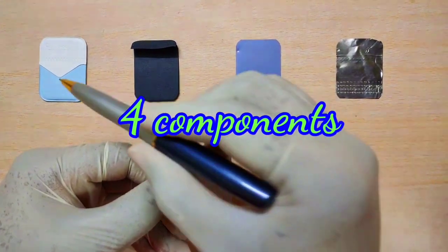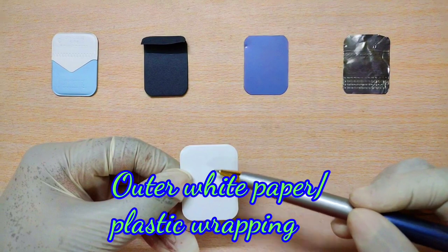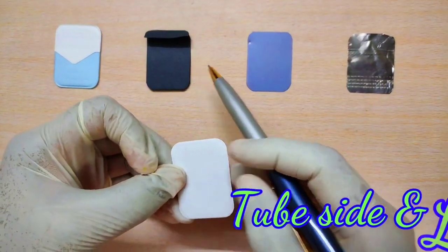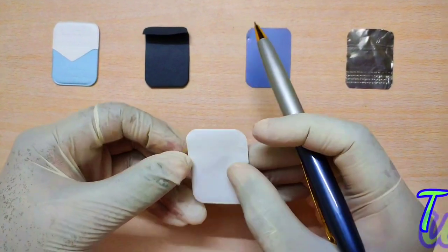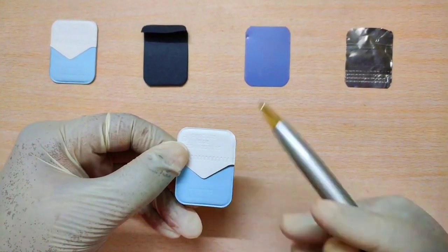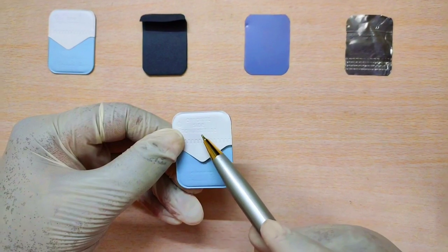There are 4 components in an intraoral x-ray film packet. The first component is the outer wrapping — a white paper or plastic wrapping made of soft vinyl or paper material. A film packet has two sides: the tube side and the label side. The tube side, which is completely white, should always be facing the x-ray tube. The label side is the back side of the film, from where you can open the film packet during processing. It has labelings like the speed of the film and a note saying 'opposite side to tube.'